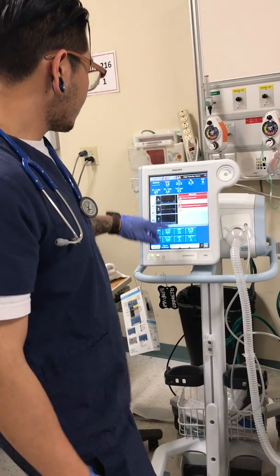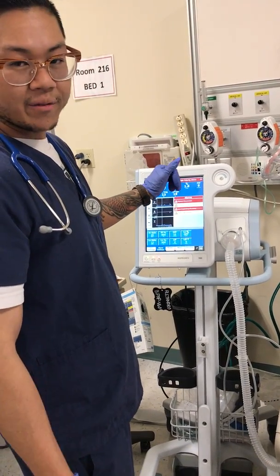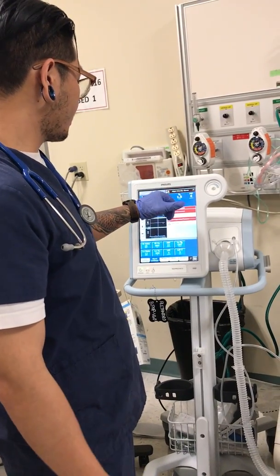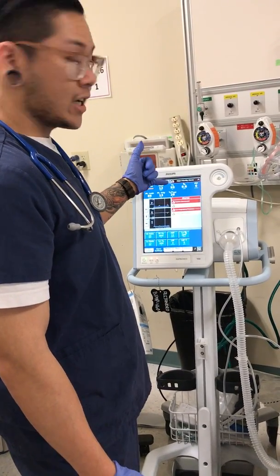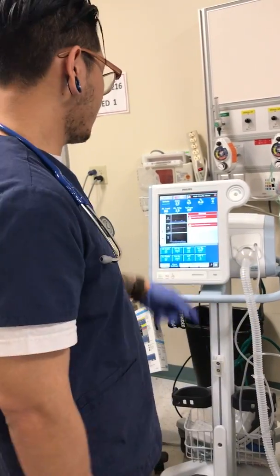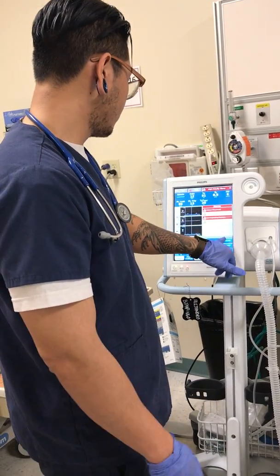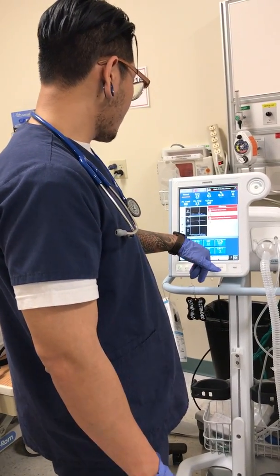We're going to follow total volume. I know this says 200, so that's not really right, but let's say that the total volume is actually 600. I'm going to go 300 above and 300 below for the alarm. So if it's 600, this is going to be 900, and this will be 300.